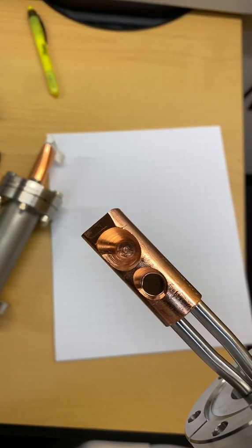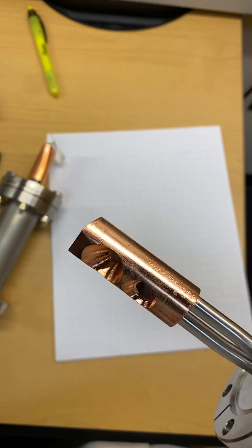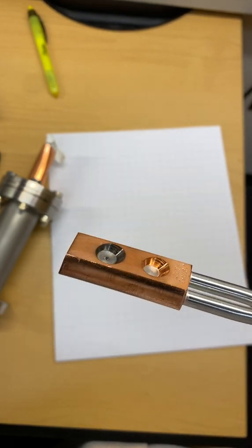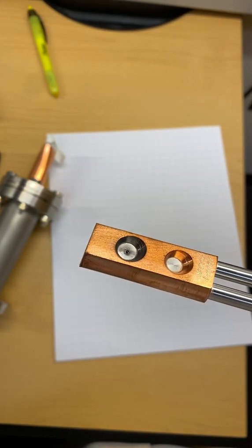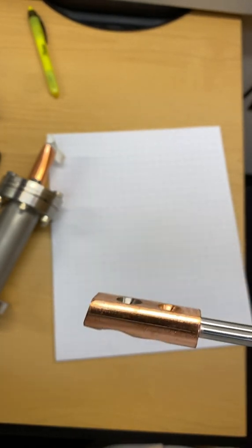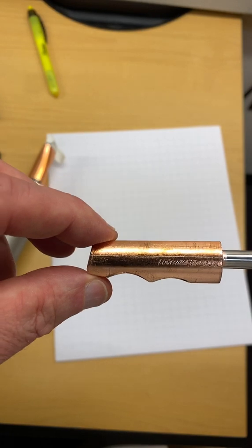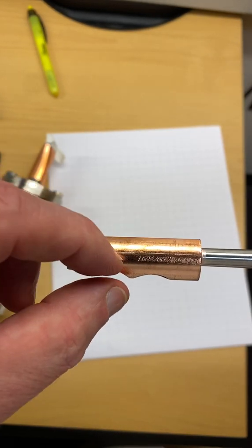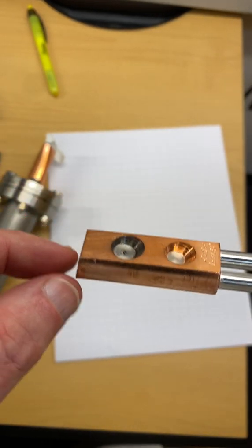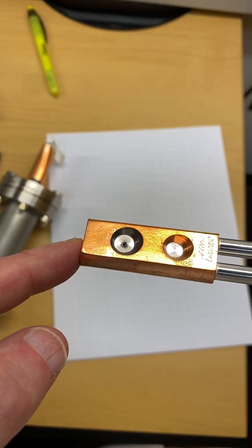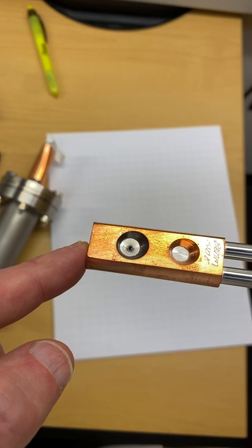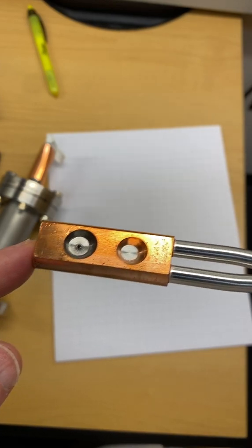The reason why is because you want this x-ray beam to exit this target. If you made this target this entire thickness you would have a thickness of copper attenuating away your 6 MV x-ray beam.